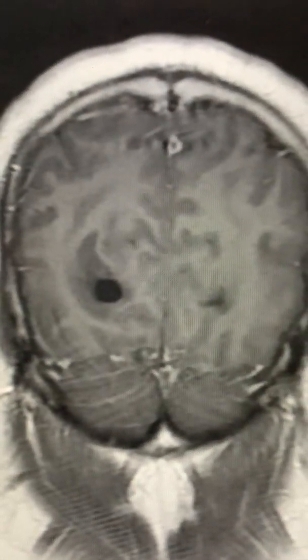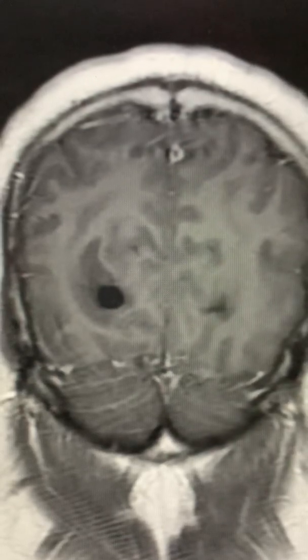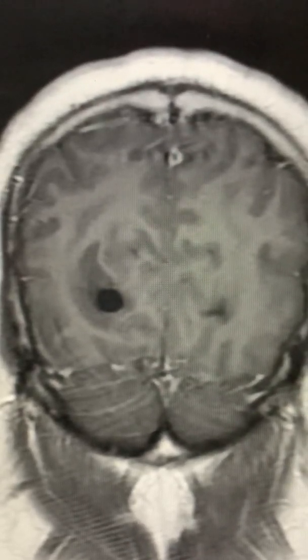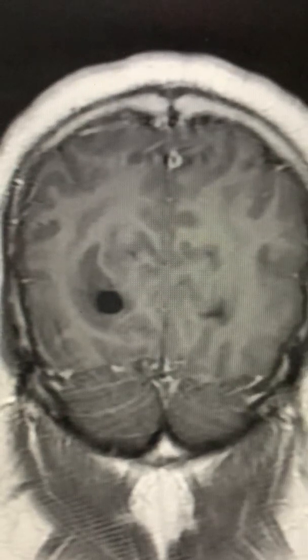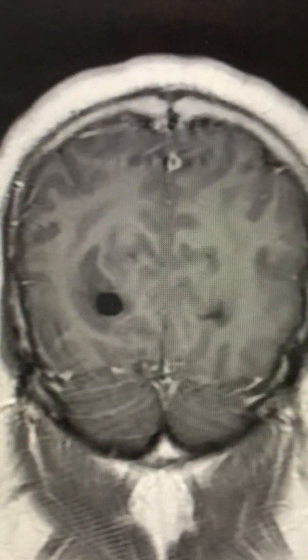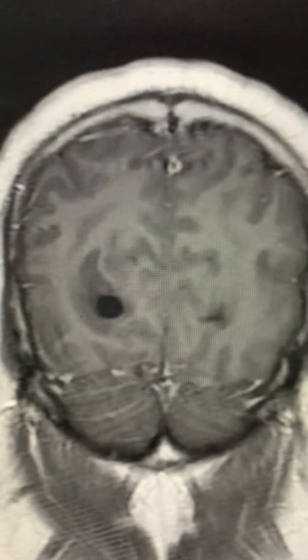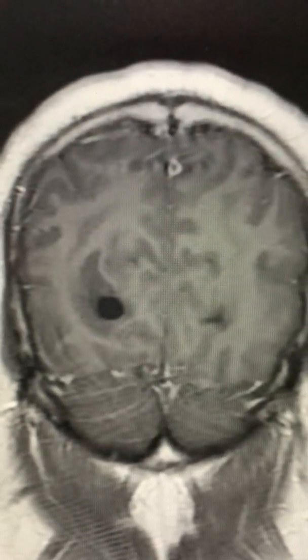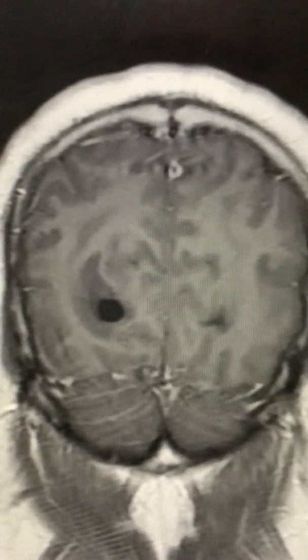Good morning, this is Dr. Louis Blevins of Pituitary World News. Today I'm showing you an example of an MRI of a patient who presented with headaches for about three months, some visual deterioration over the period of a couple of months, and periodic nausea.